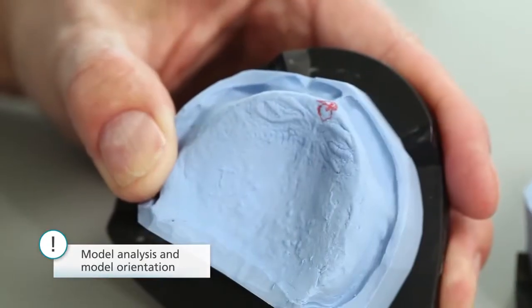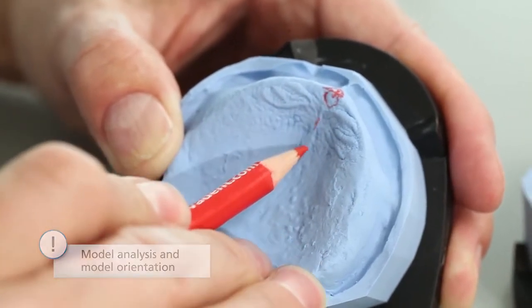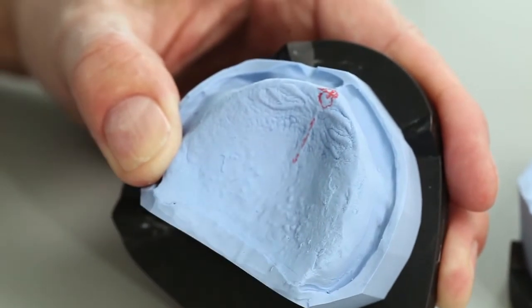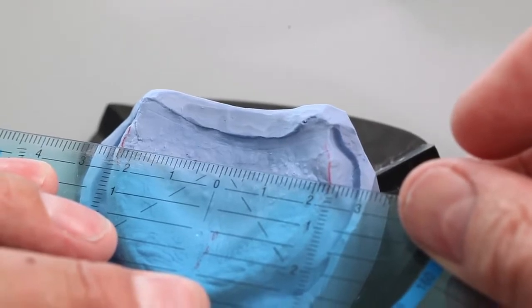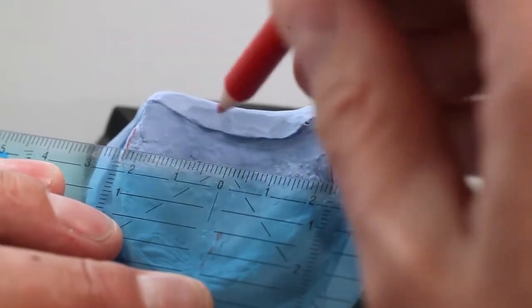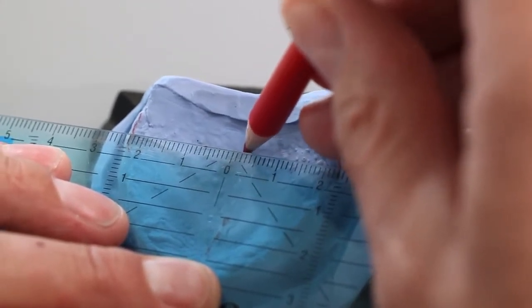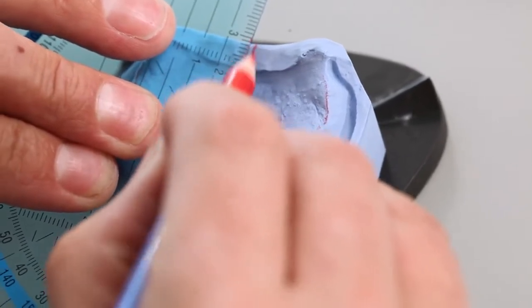The following reference points must be observed for the correct model orientation. The incisive papilla and palatine raphe provide the anatomical midline. Mark the highest elevation of the tuberosities on both sides. This allows you to determine the dorsal center. Extend the midline to the edge of the model.